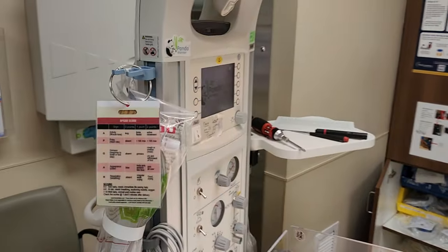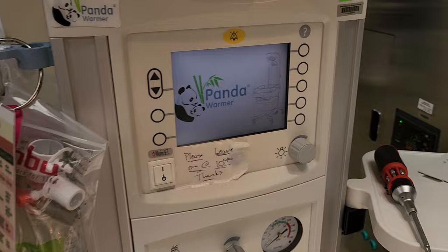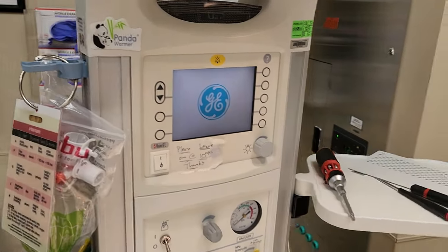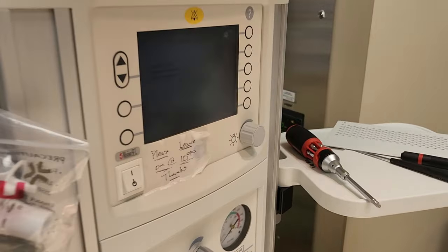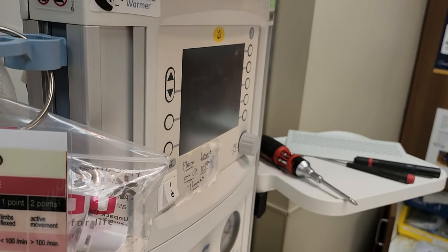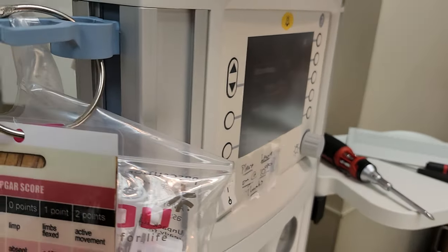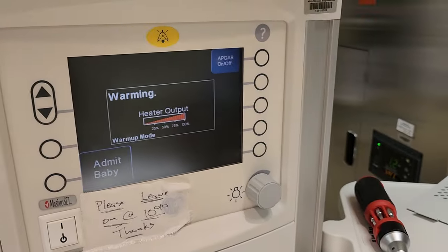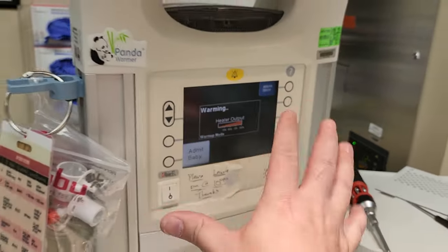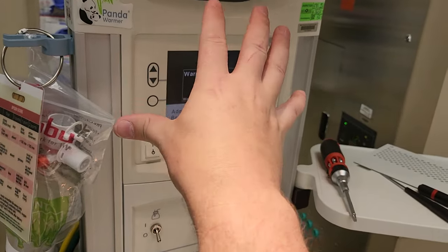Because if you don't do something right away — now imagine the screen's not on — you will hear alarms. So you let it go through the boot. The display was nice and dark, couldn't see, couldn't do anything. And if you don't do something, it will go into an error condition and it will beep repeatedly. When you hear that beeping going on, that means you definitely have DC power here.